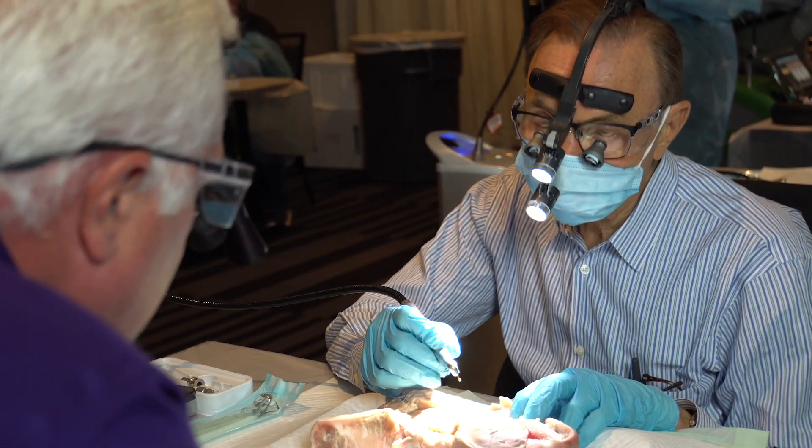You've been a pioneer in dental lasers from the very beginning, and you know that not having blood when you're trying to do something — a patient doesn't want blood, and you and I don't want blood either. When we don't have blood, we're able to actually see what we're doing. We do it faster, cleaner, more effective. That's the phenomenal thing about this laser. I had the first dental laser in the United States, and lasers have come such a long way. I think it is going to become the standard of care and a major wave of the future for all of dentistry, particularly for periodontics.